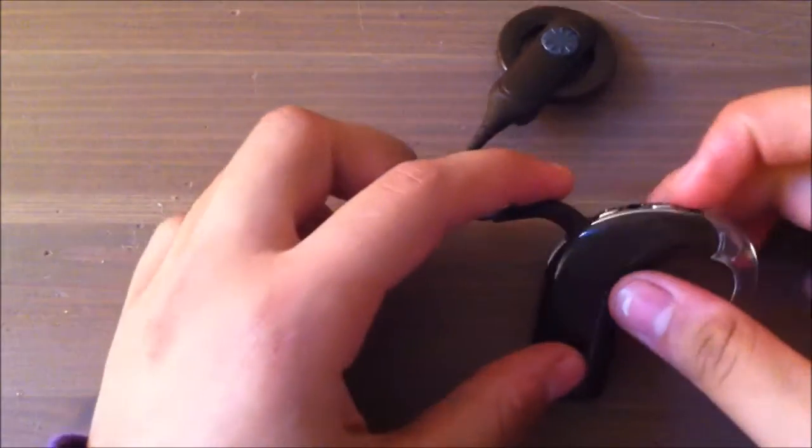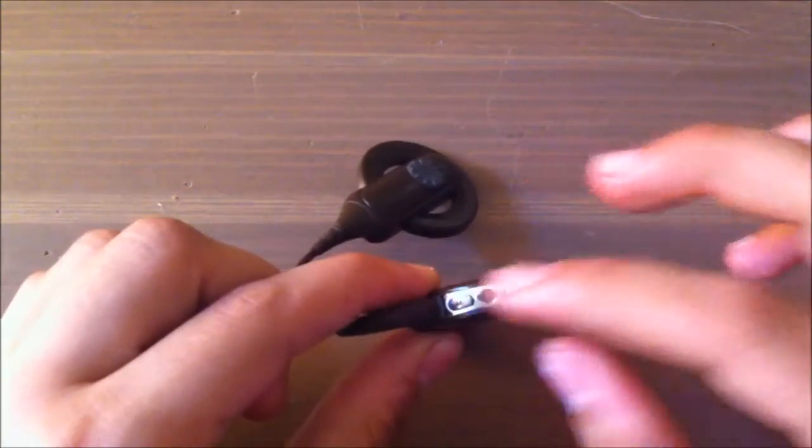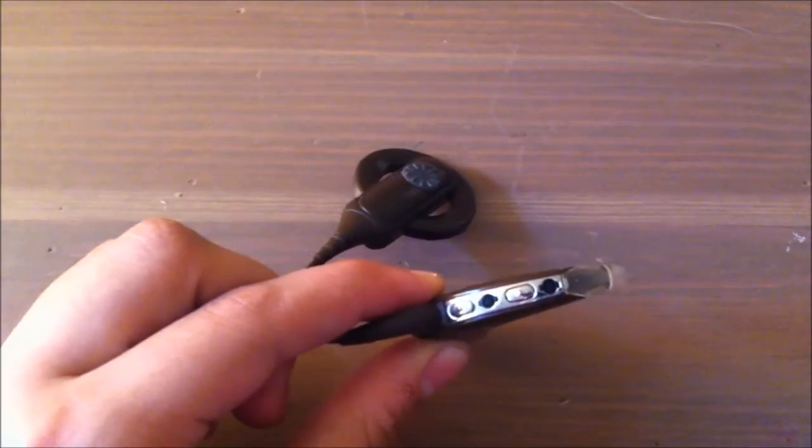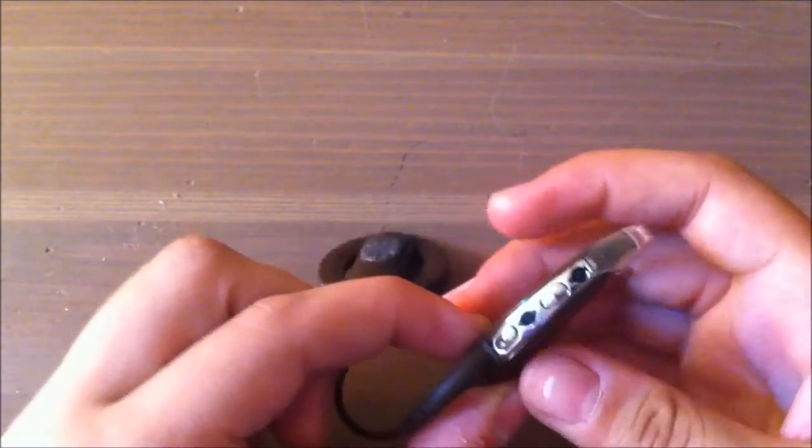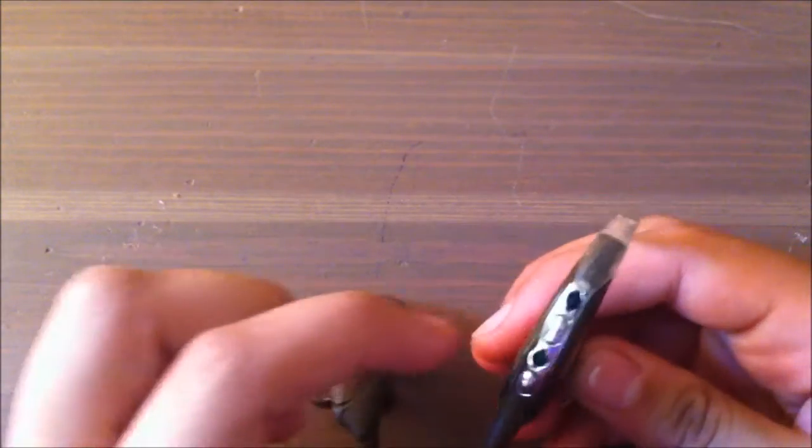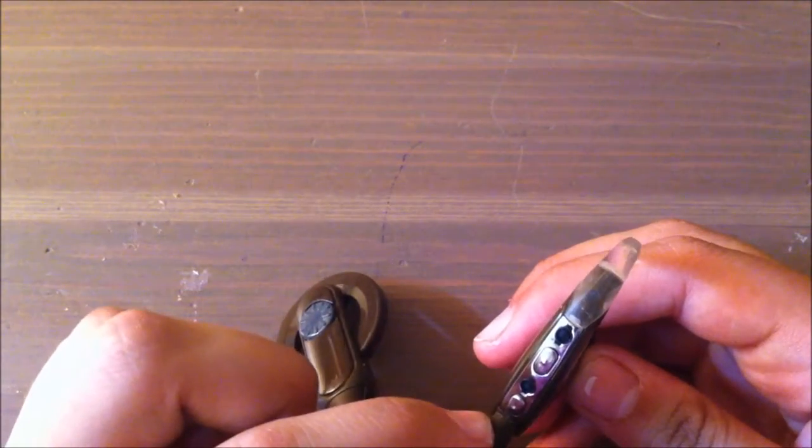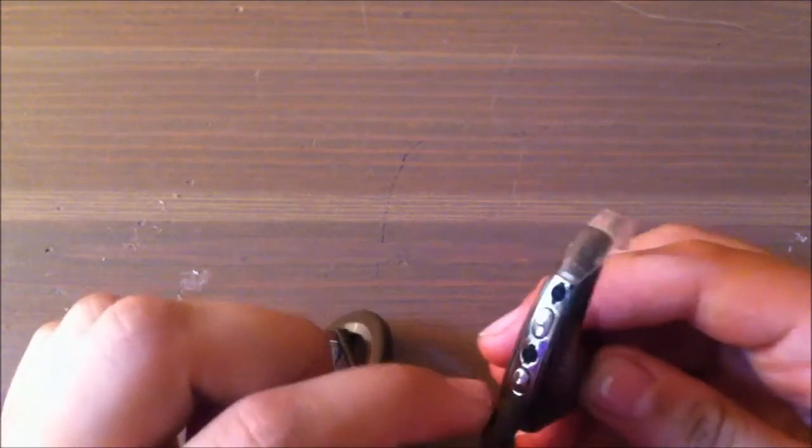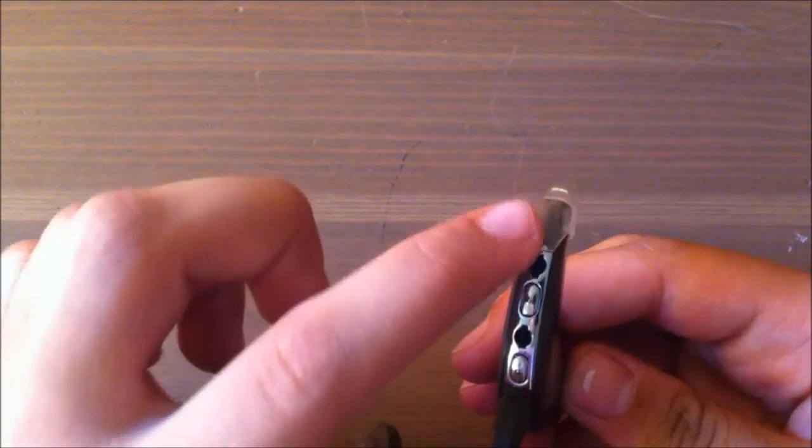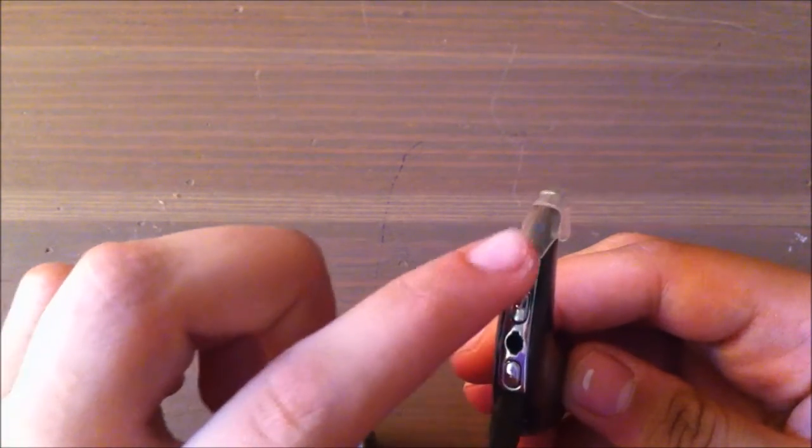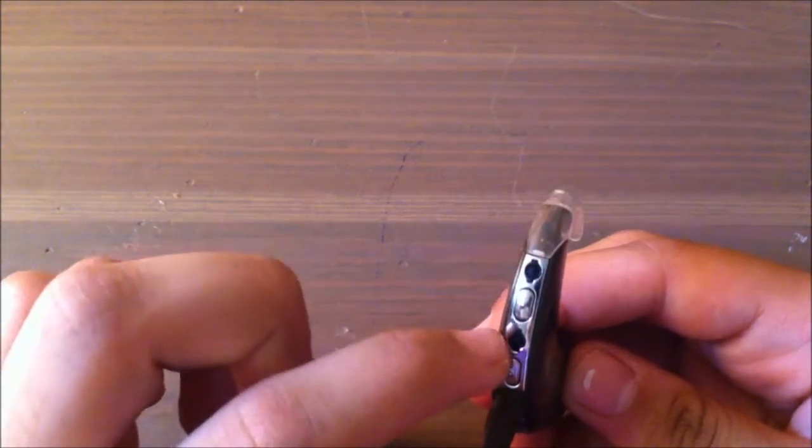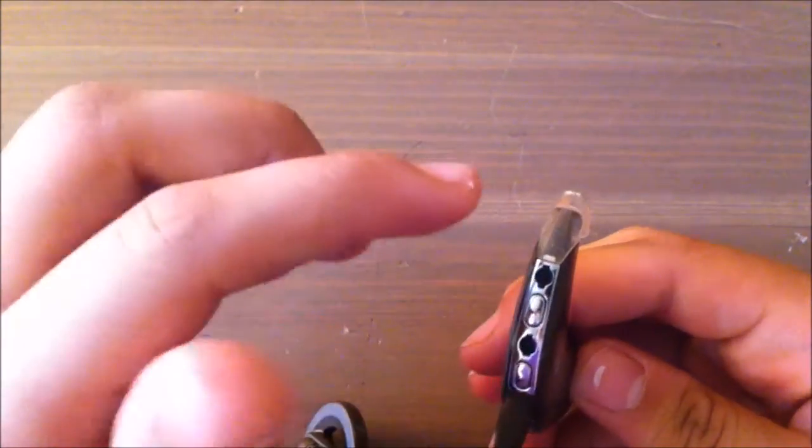Let's start at the top of the cochlear implant. These two are filters, which are microphones where the sound actually goes inside. These black things over here are filters and microphones.